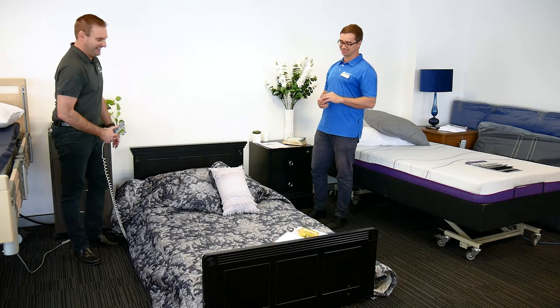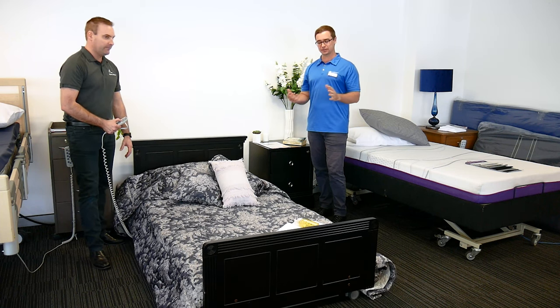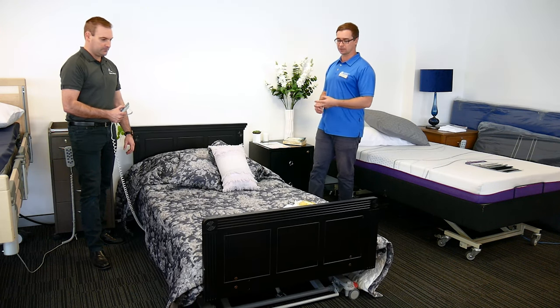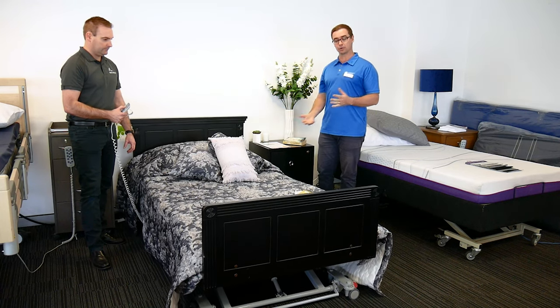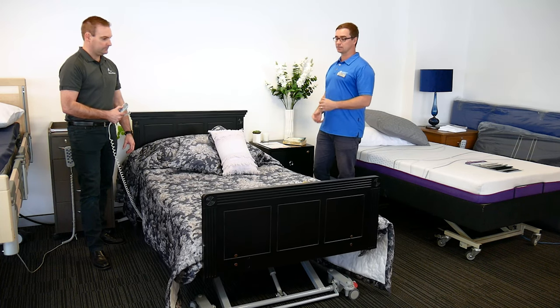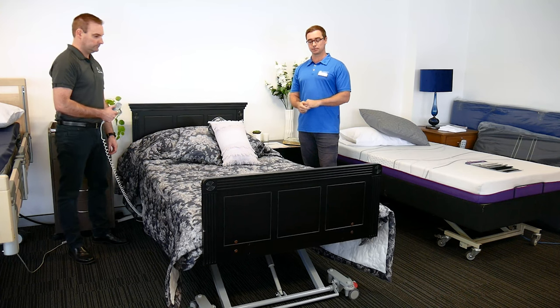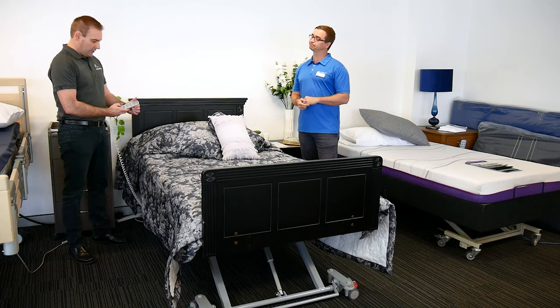There are multiple different reasons why I would be recommending a floor line bed, and beyond the scope of this video we're more just getting people to open their eyes and ears to different types of equipment you can have in your home. You'll often have pieces of equipment like this that residential aged care facilities and disability group homes will also be engaging with. It's a wonderful piece of equipment.